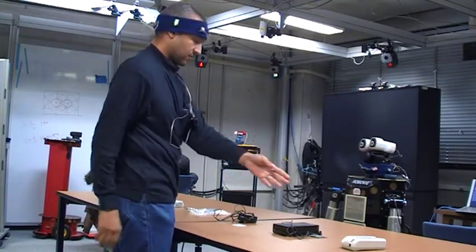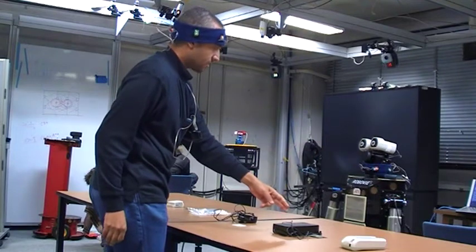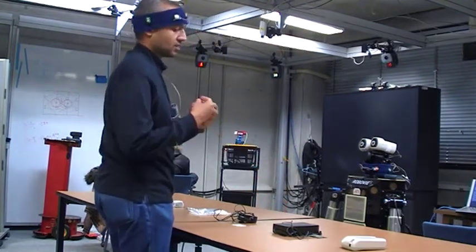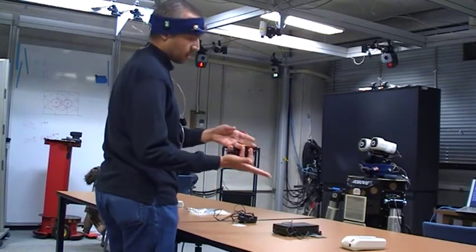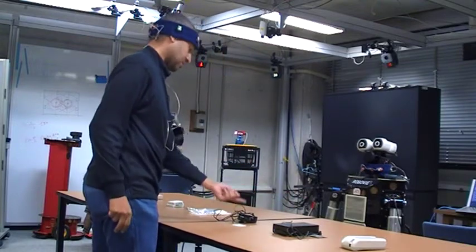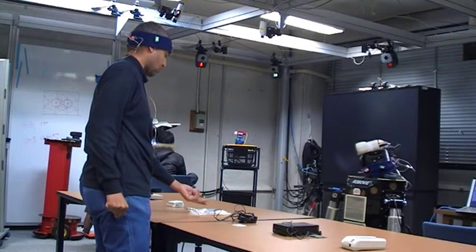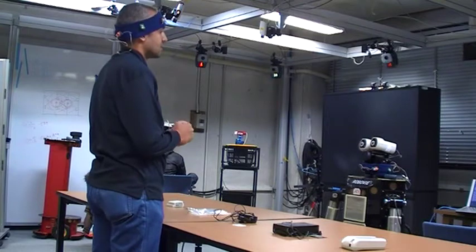Let's have a look. We have the main part, and this main part is the one that we connect everything to, and you can save data either to a card or a PC. You also have this one, which is for the charger. You have this one for cables. You have this and this as external sensors.